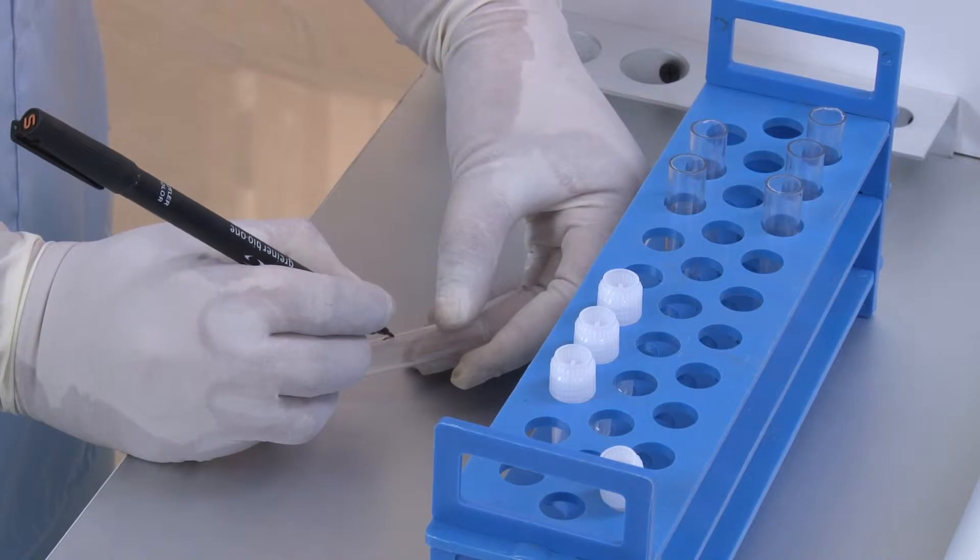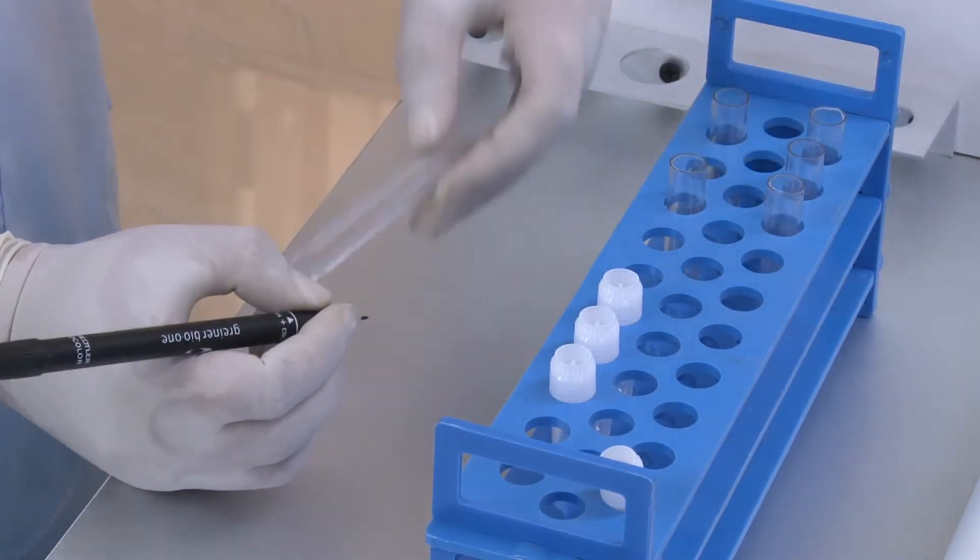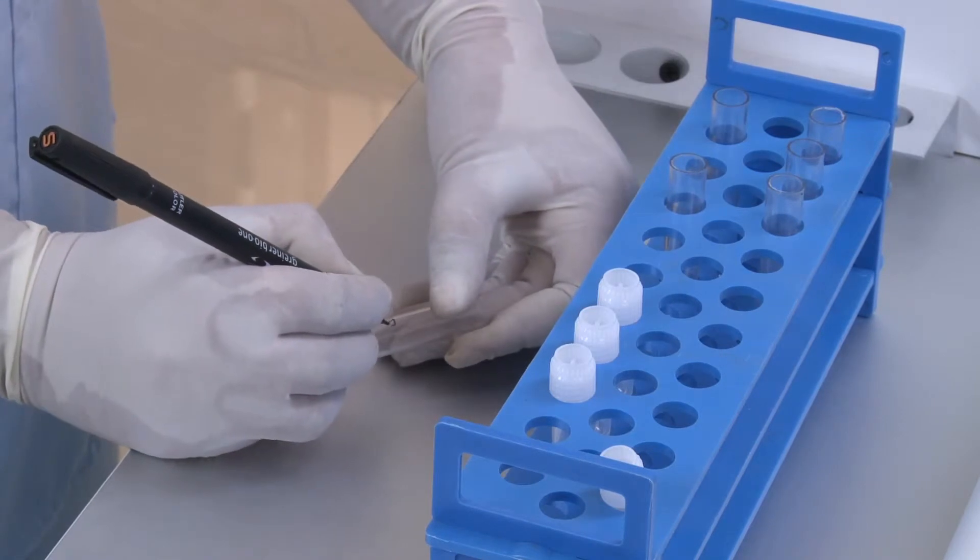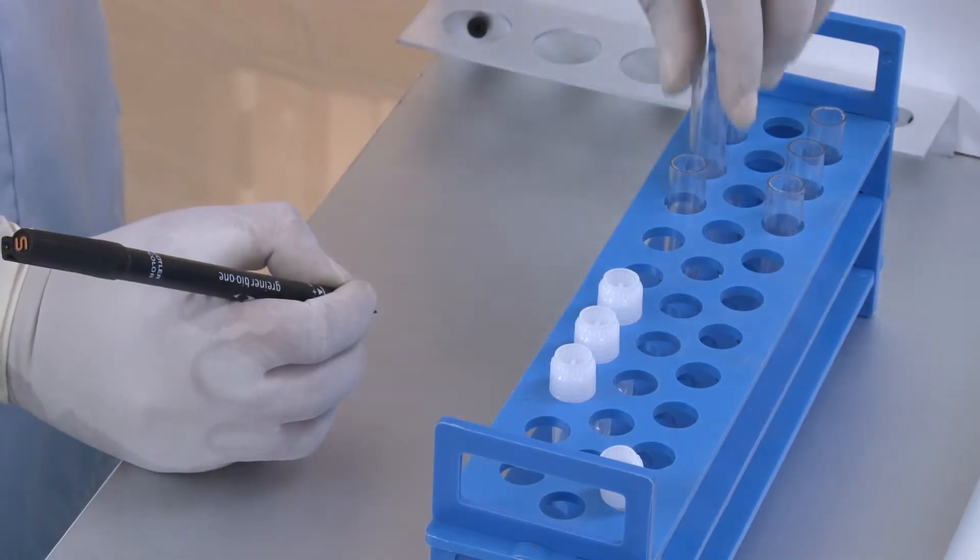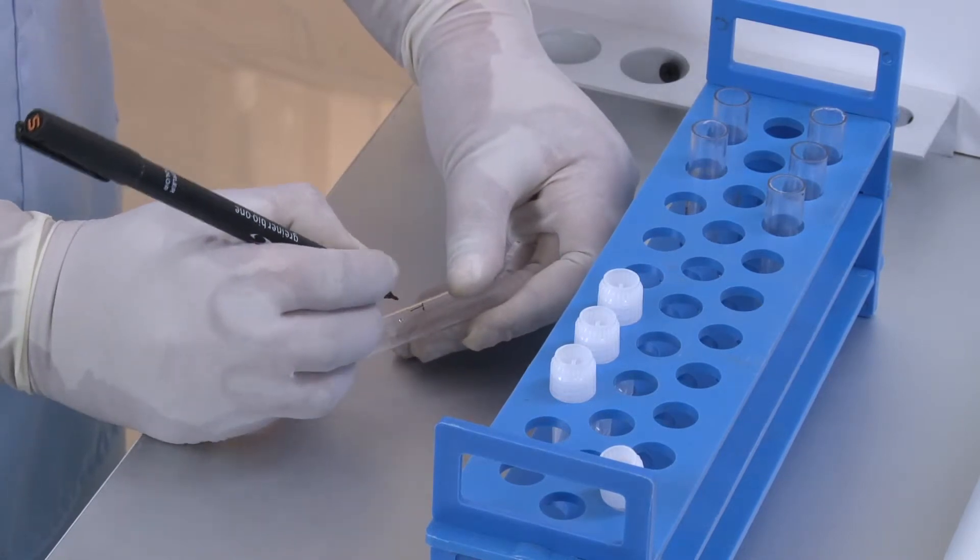Label three tubes as blank, standard, and test with patient ID.